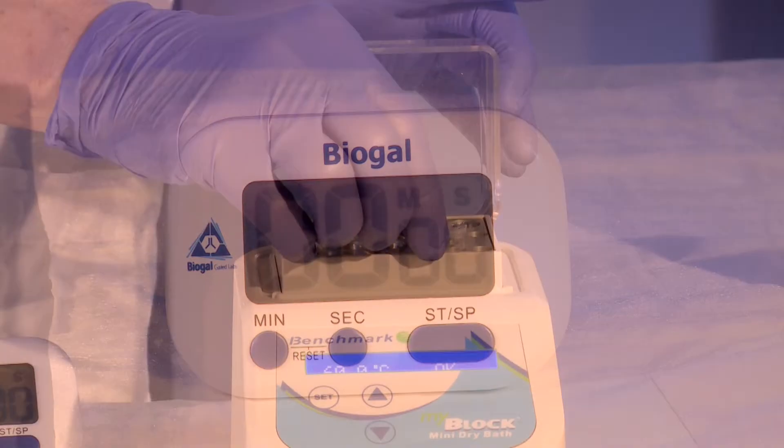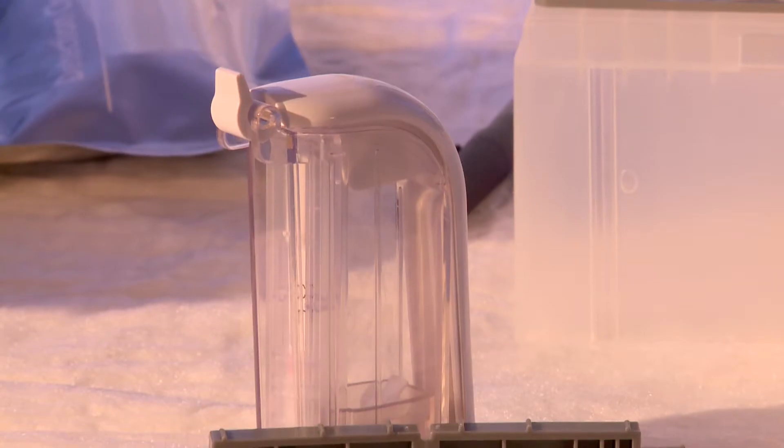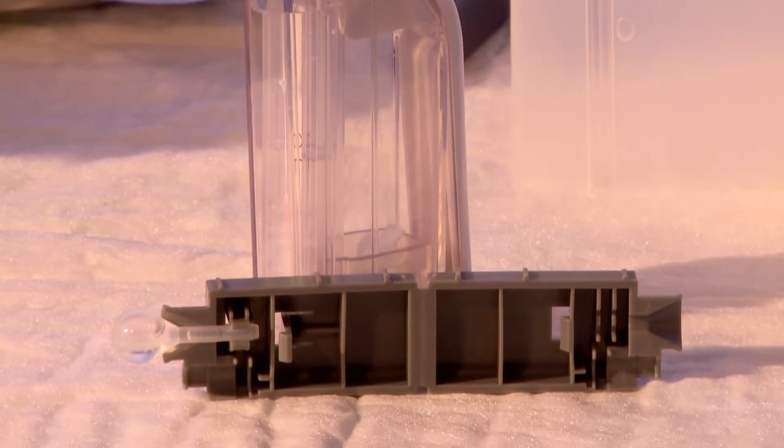At the end of the one hour incubation period, remove the tube from the heat block and analyze immediately with a disposable nucleic acid detection device.